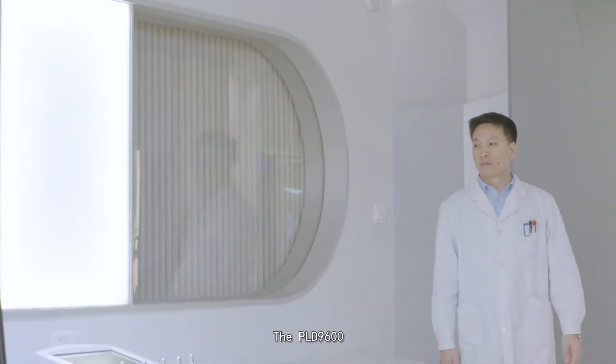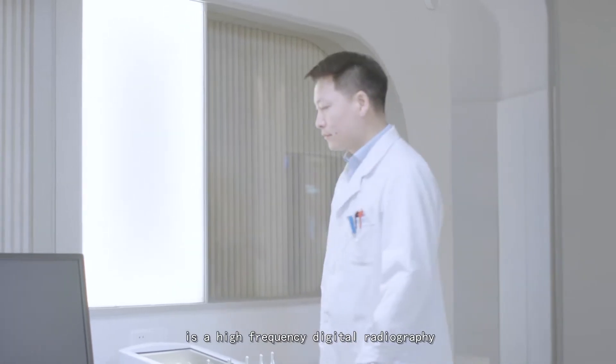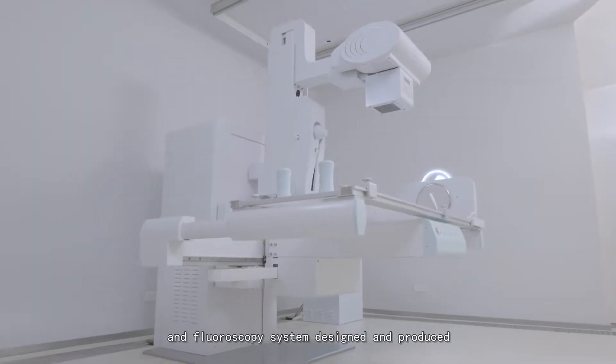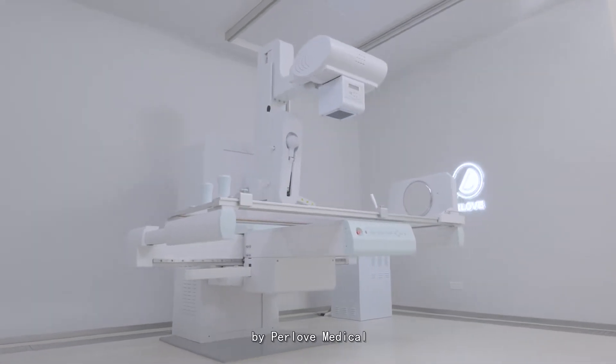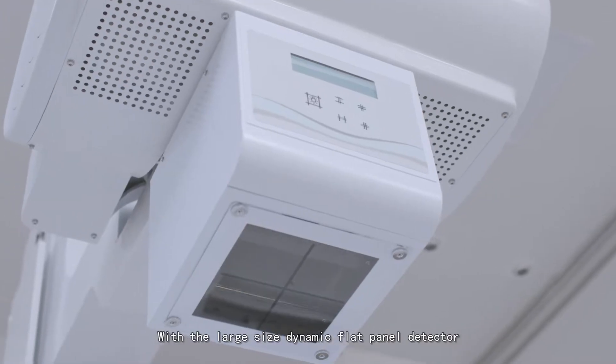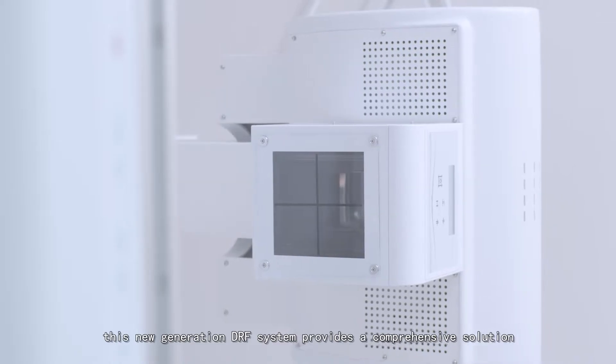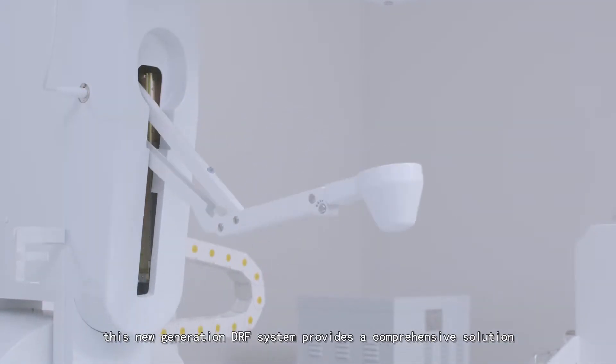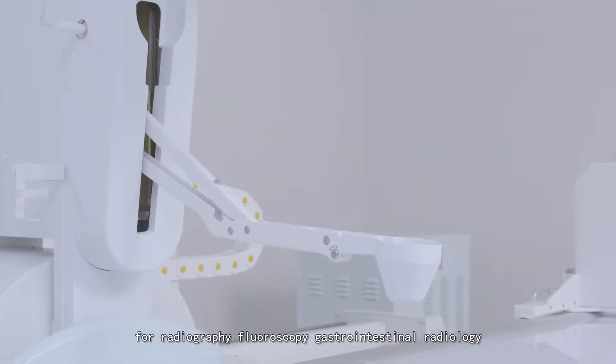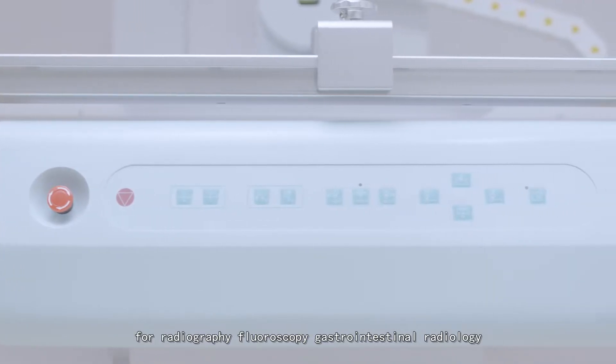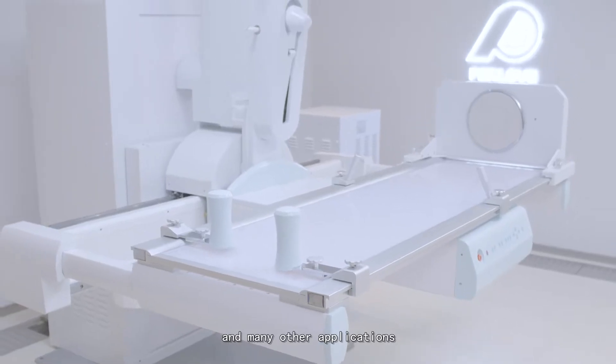The PLD9600 is a high-frequency digital radiography and fluoroscopy system designed and produced by Perlove Medical. With a large-sized dynamic flat panel detector, this new generation DRF system provides a comprehensive solution for radiography, fluoroscopy, gastrointestinal radiology, and many other applications.